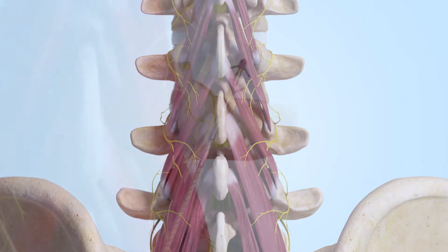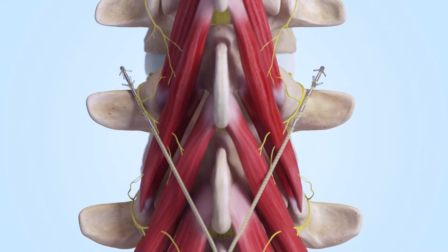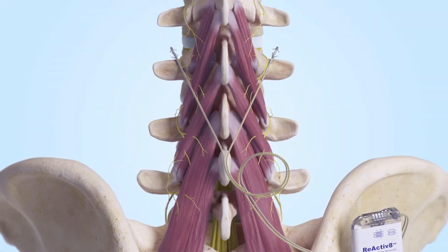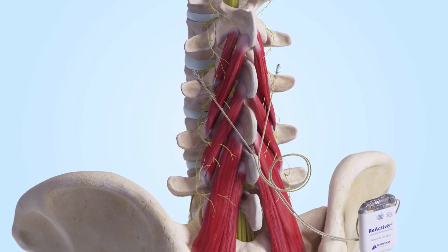Reactivate is designed to stimulate the nerves responsible for contracting the multifidus muscles. The brain senses the muscle contractions and in response can trigger restoration of muscle control, with the multifidus again providing joint stability. The continuing cycle is interrupted, facilitating a recovery from chronic low back pain.